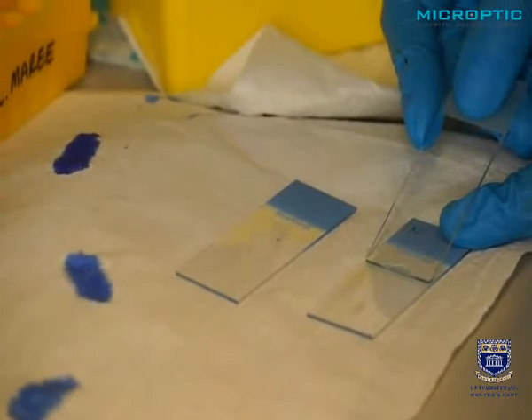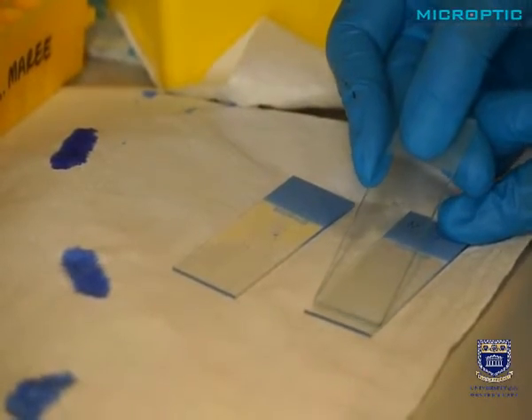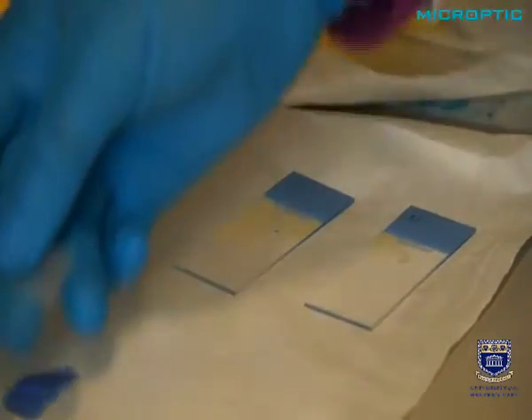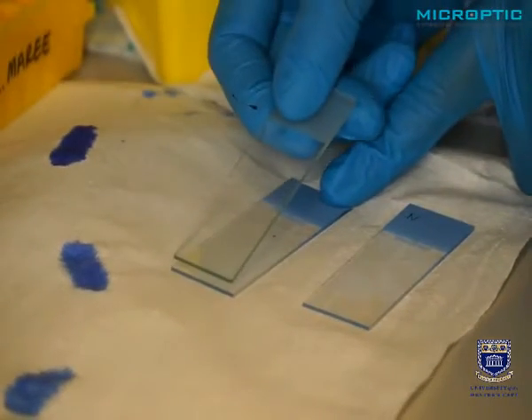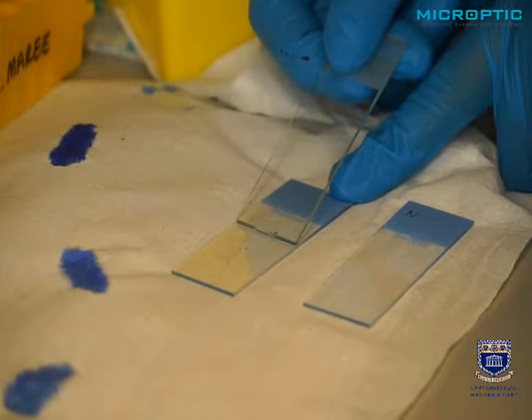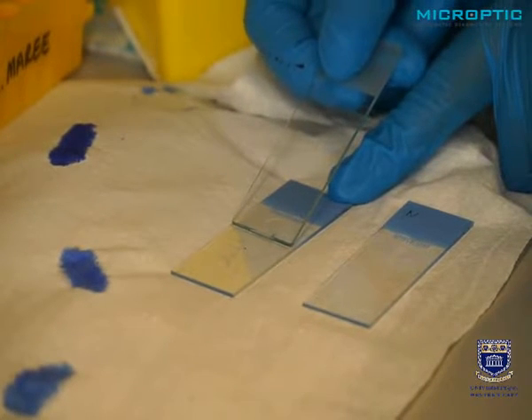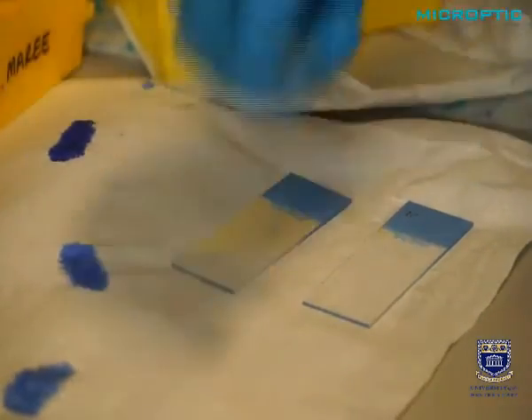Now it touches the drop at the back of the slide, and it drags the fluid, the semen, behind. So no sharp edge can cut the sperm. So she brings it quite from the top, brings it close to the drop of sperm. It fills the area behind the slide, and she completes the slide.